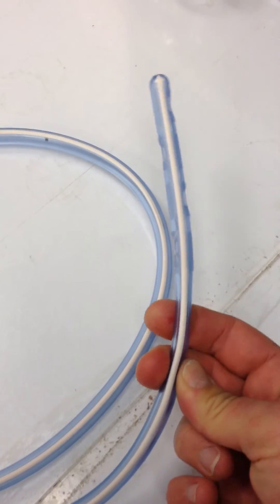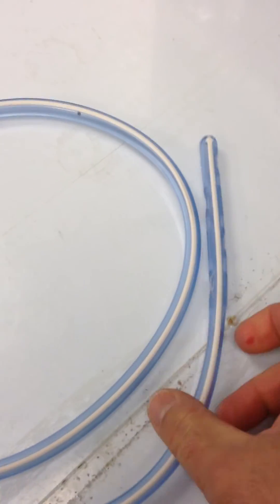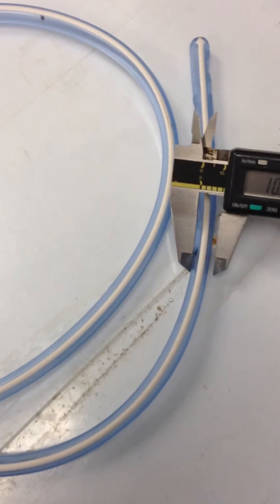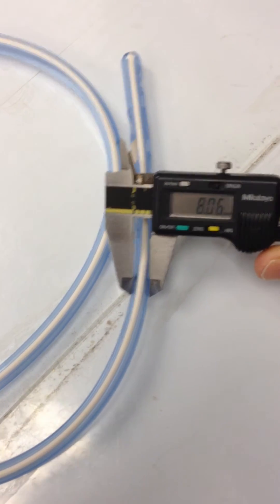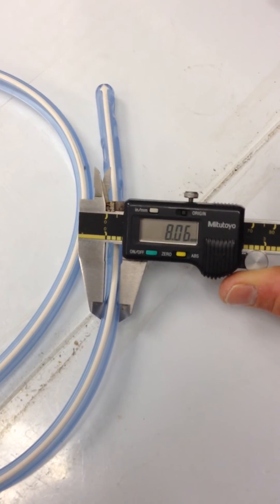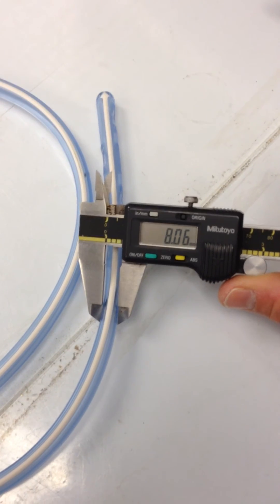And since this is plastic deformation, the longer I leave this hooked up to suction, the more pronounced this effect is going to be. You can see the area I was just touching on, I've even made it smaller. It's not rebounding, it's not bouncing back.